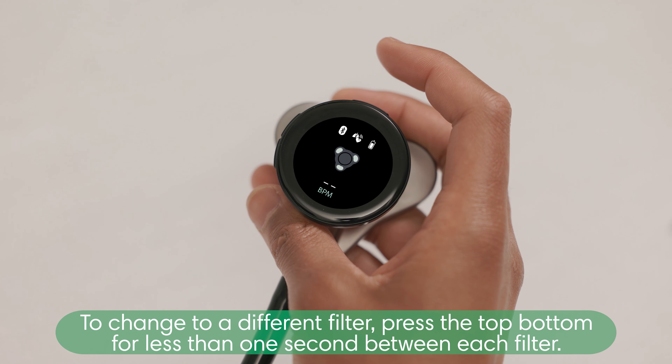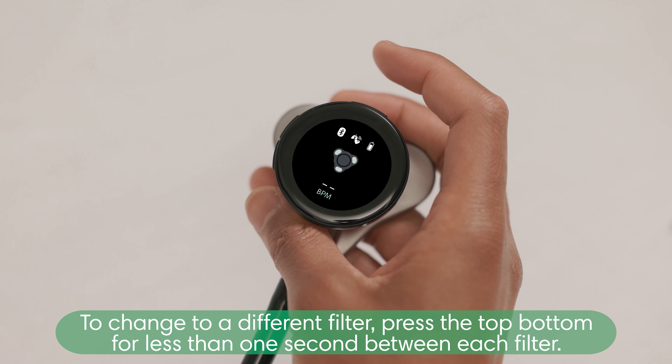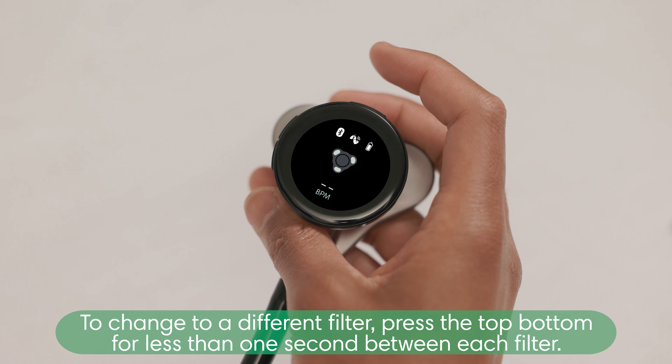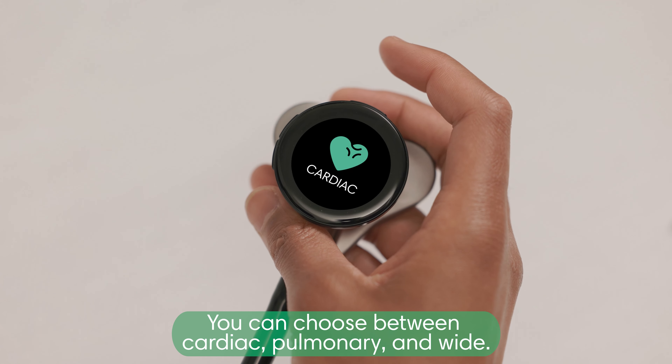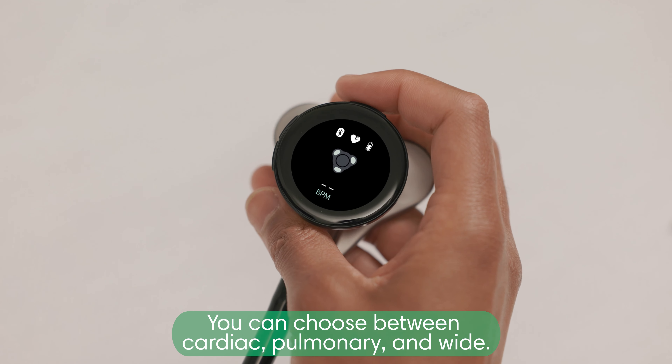To change to a different filter, press the top button for less than one second between each filter. You can choose between cardiac, pulmonary, and wide.